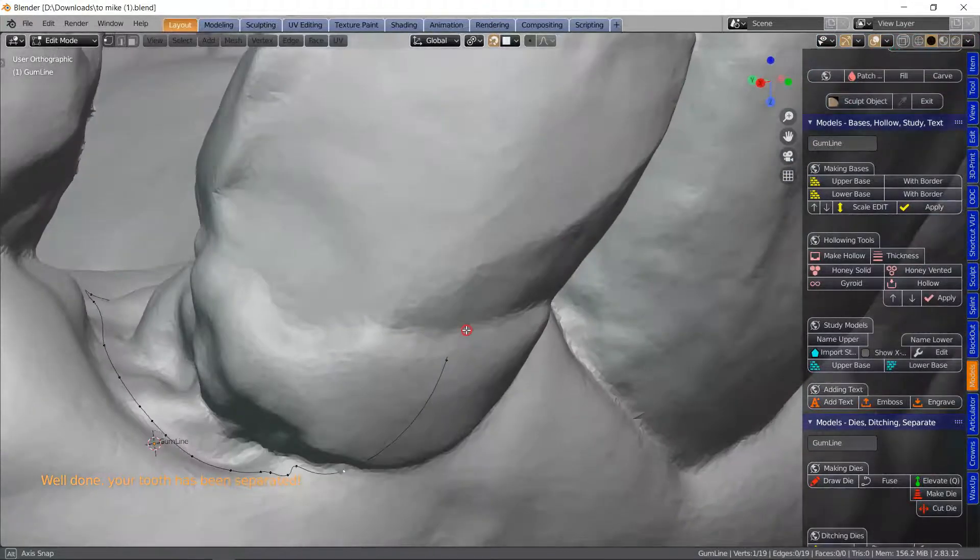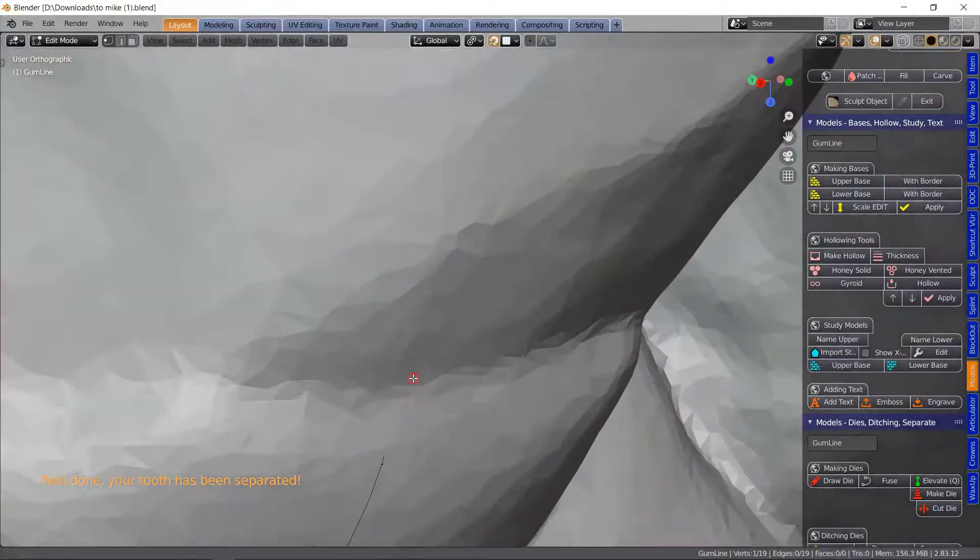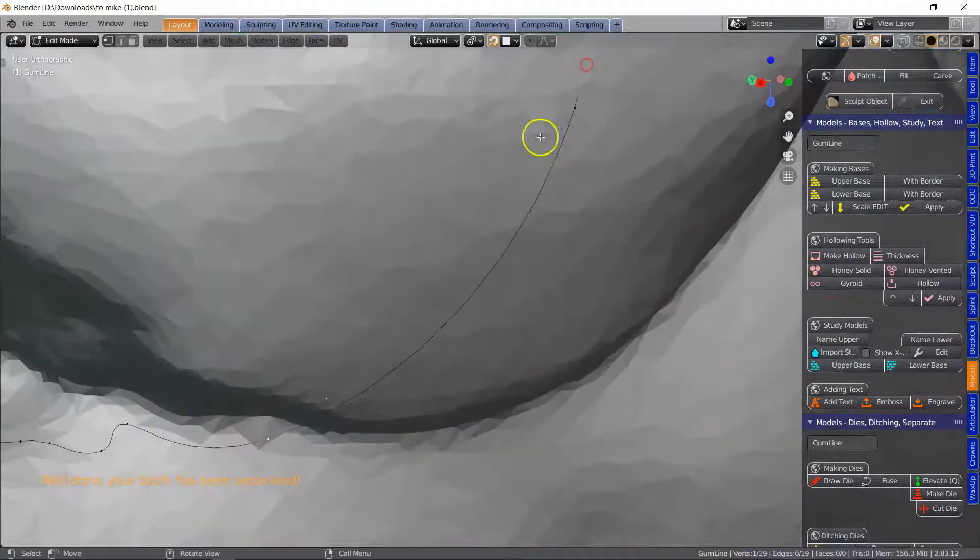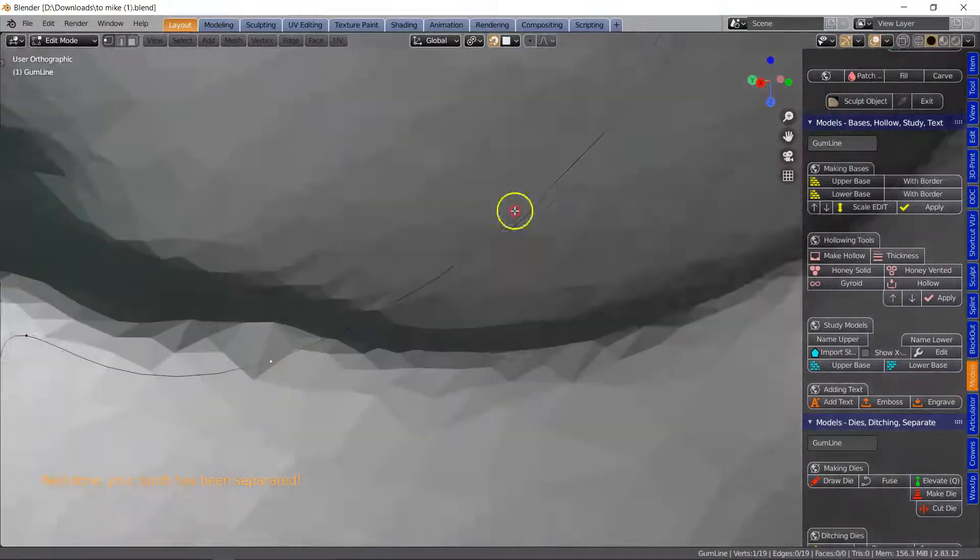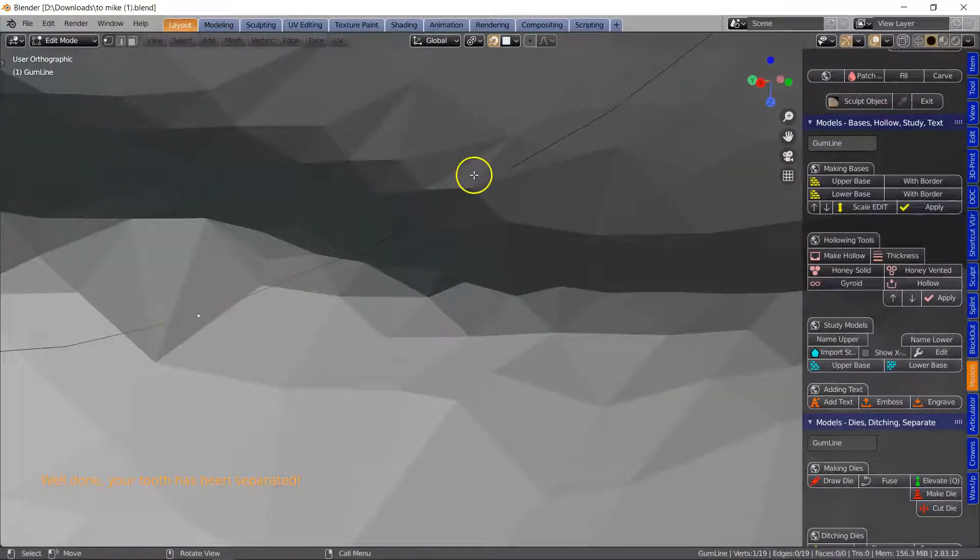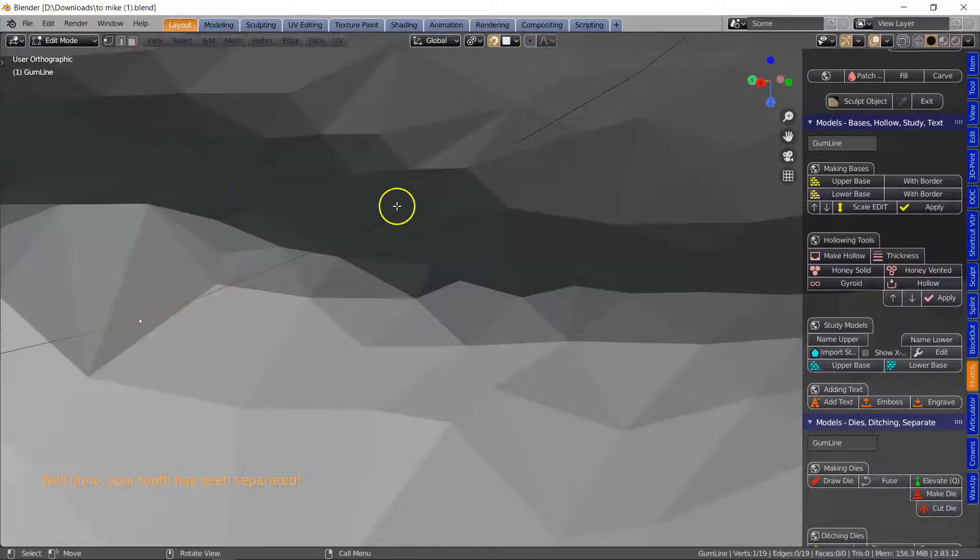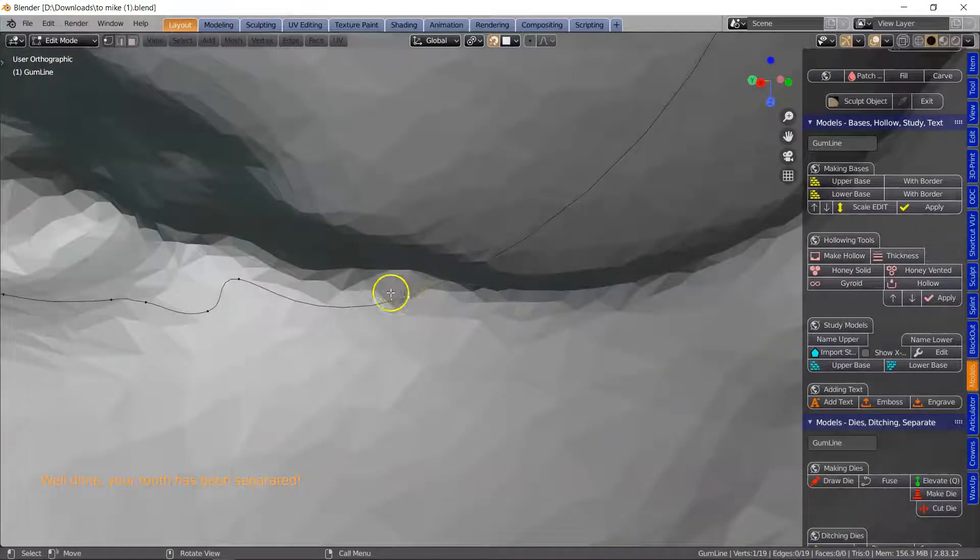So let us cut off this tooth and I'm just going to give a quick inspection. I see we've got this vertex, the edge, intersecting the actual surface of the model.